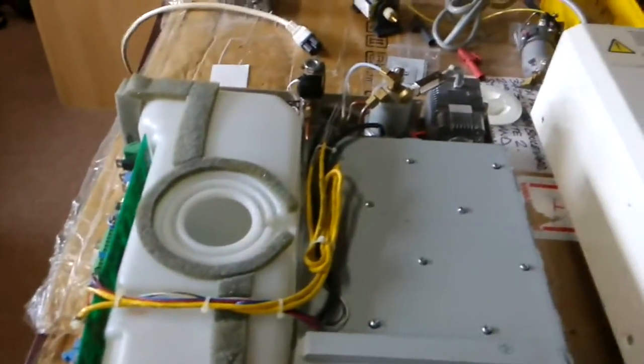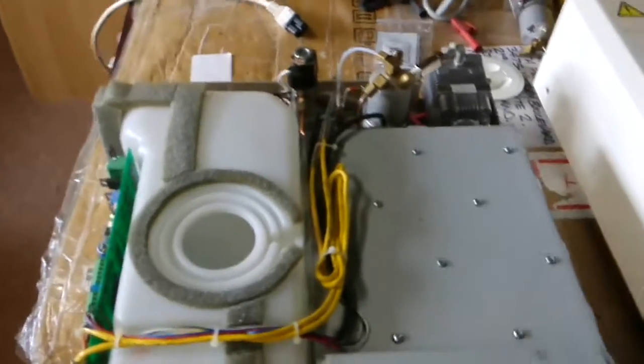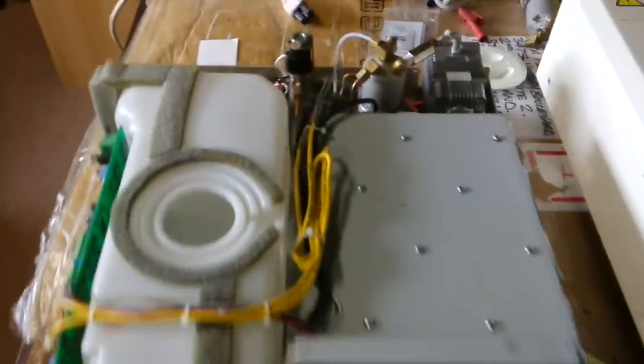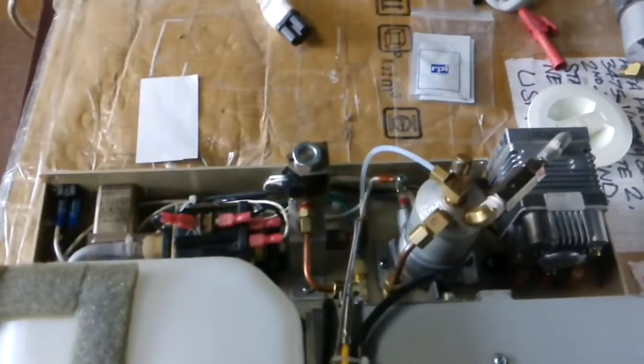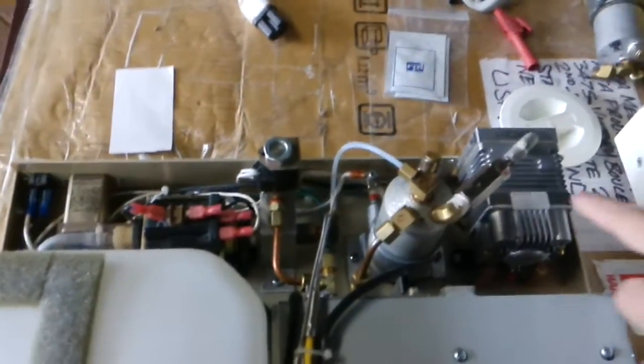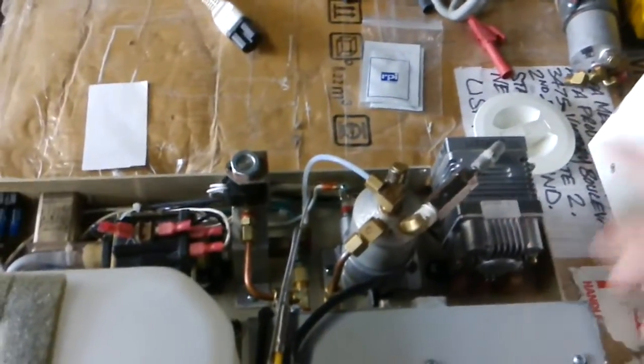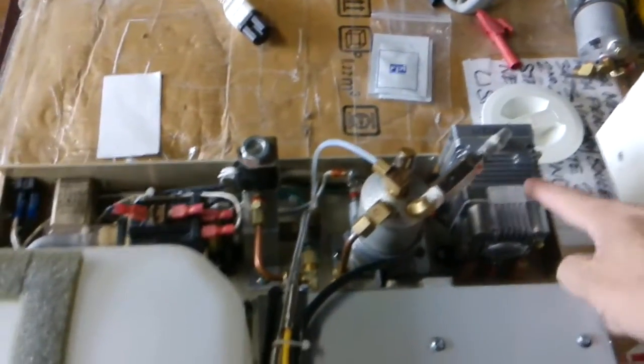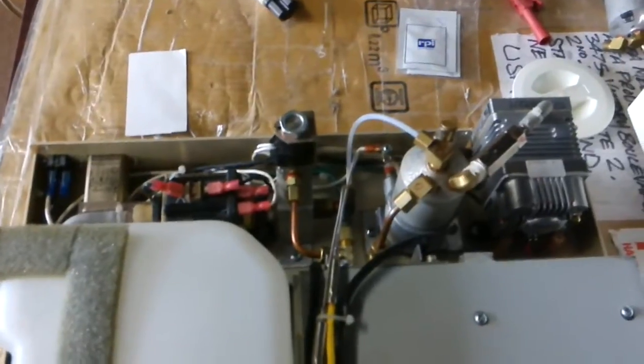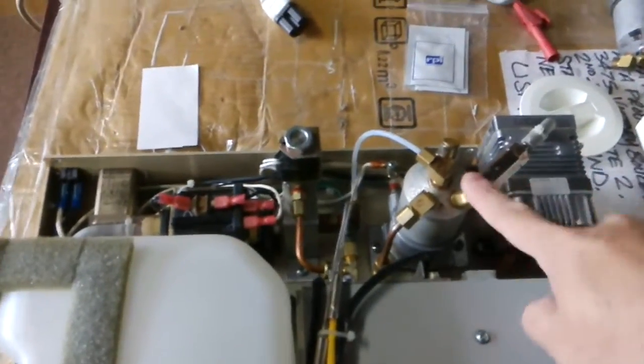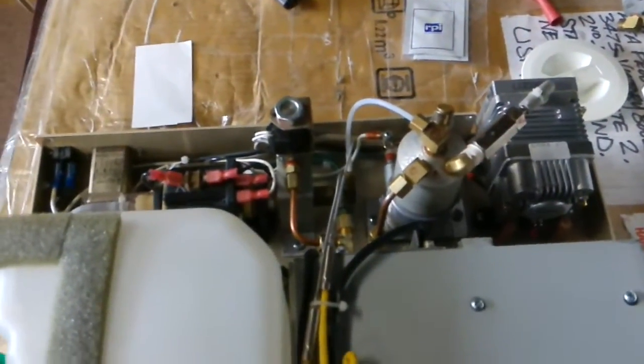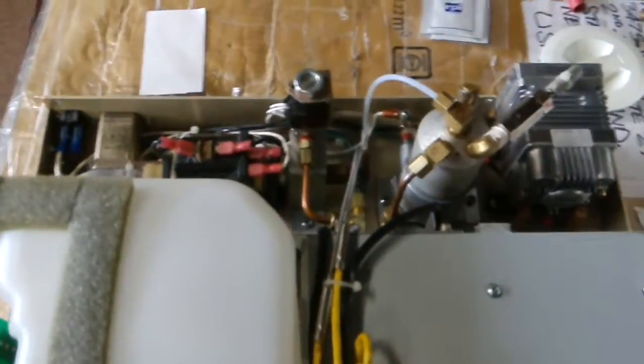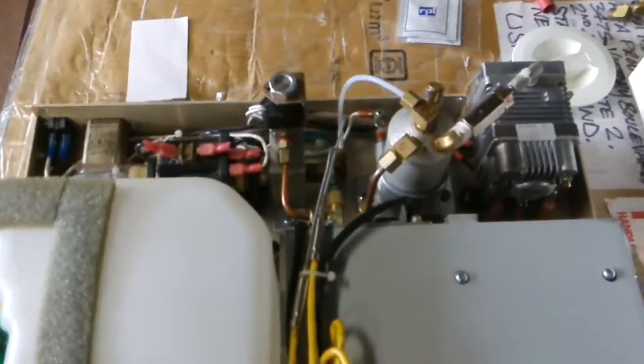Here are the main components of this machine. This air pump - when the machine goes to the dry cycle, it pushes air inside the cassette. This is the boiler that generates hot steam pushed inside the cassette to reach the temperature, like 135 degrees Celsius. It's a little bit high temperature.